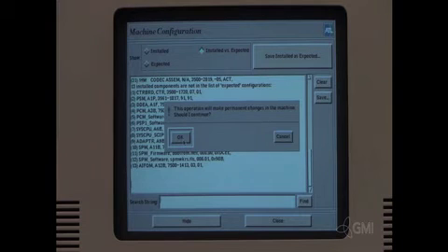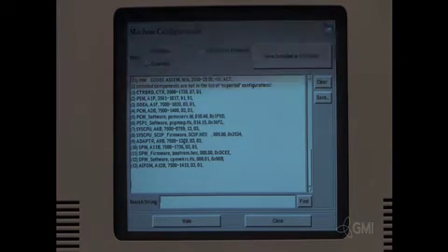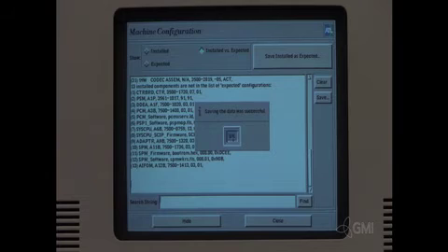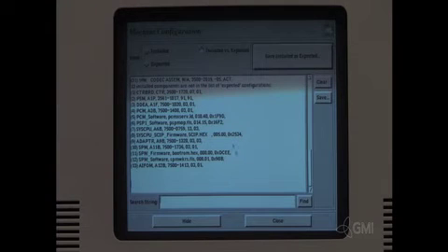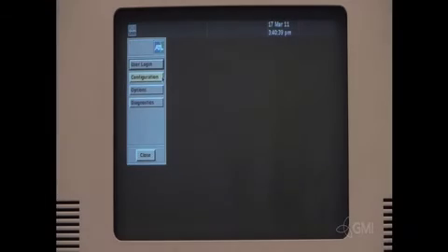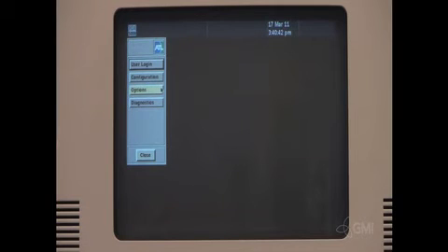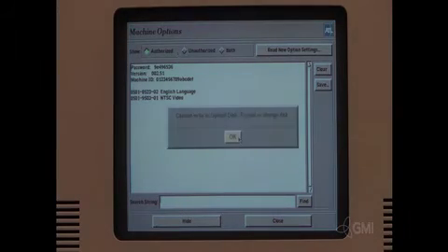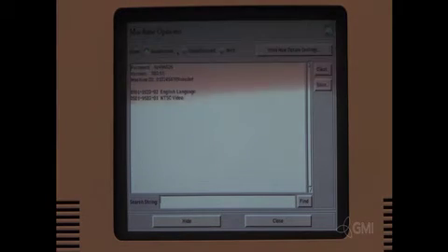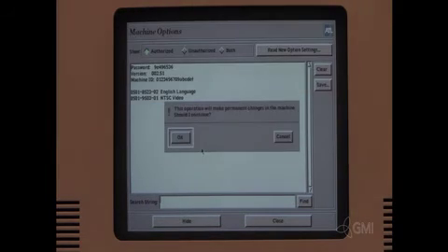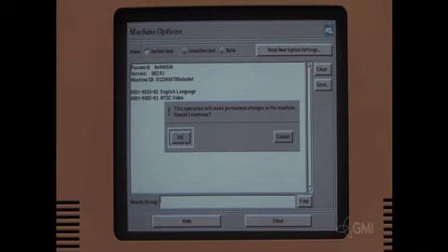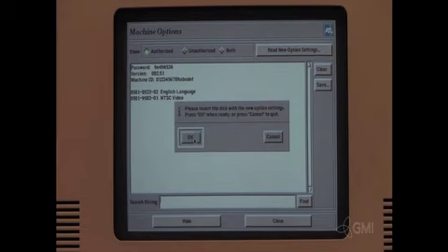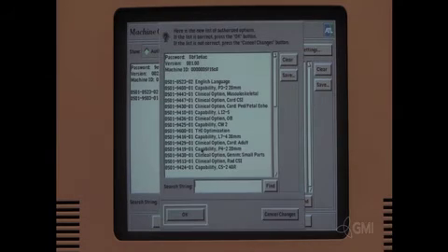Select save installed as expected. Select ok. Select ok. Select close. Select options. Install backup optical disk. Select ok. Select read new options settings. Select ok. Select ok. Verify options.